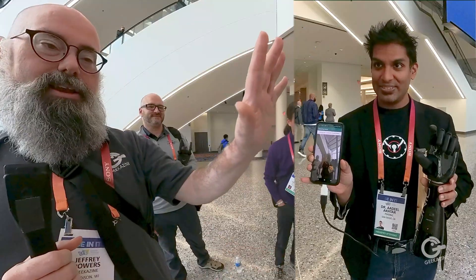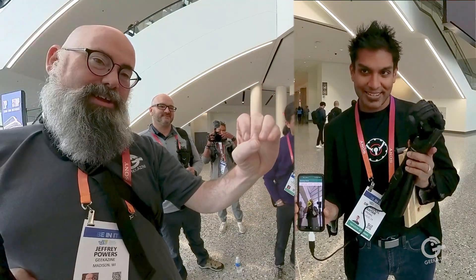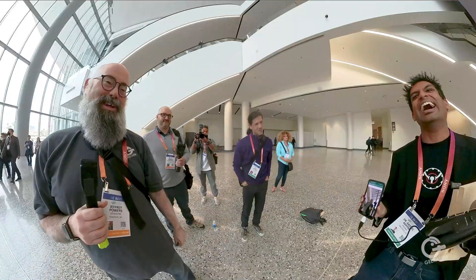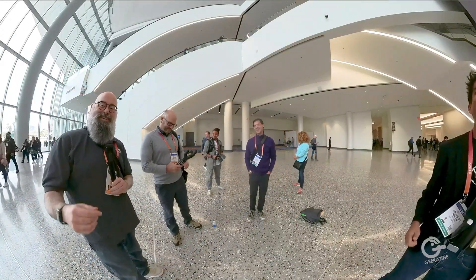Let's try with the app. Hand up — it's using my hand. I go geek — geek out. I've done it robotically. That's awesome. Thanks a lot, guys.